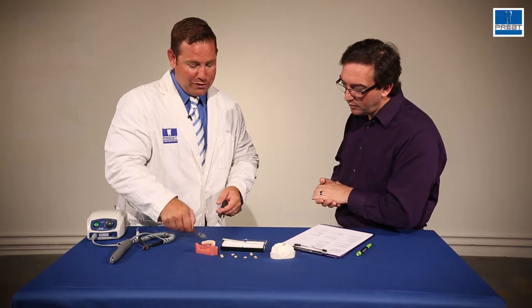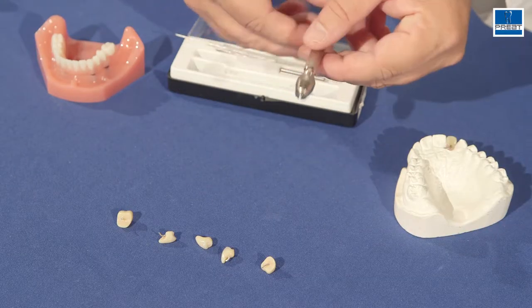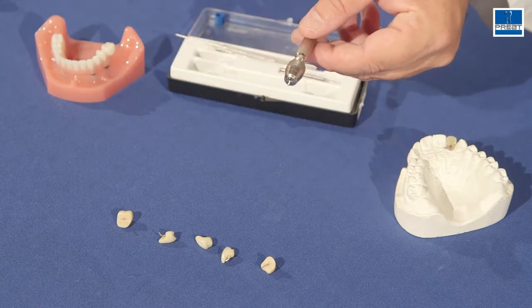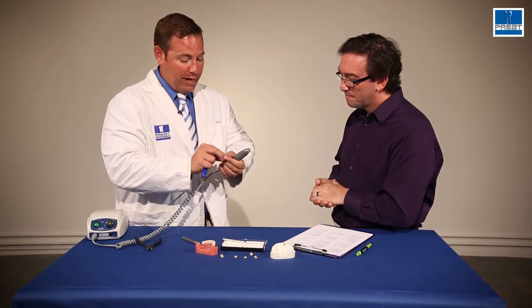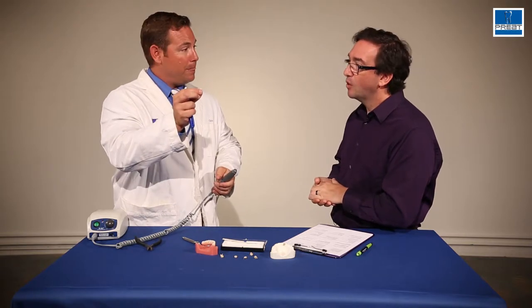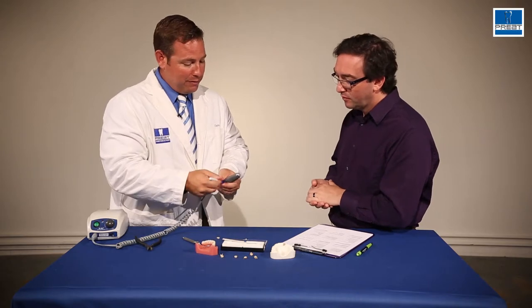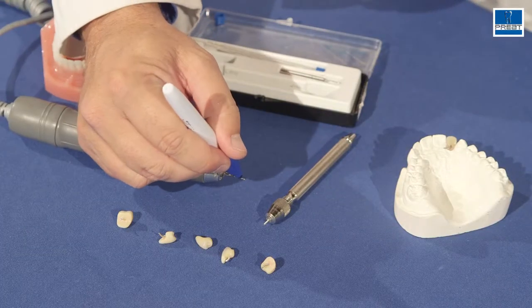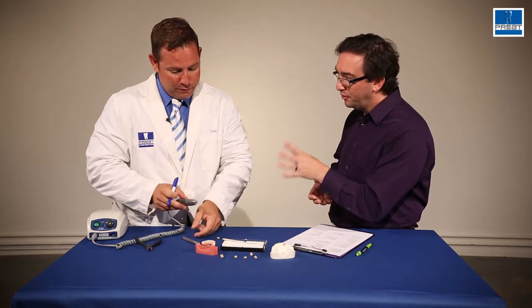The third piece of the system is the wire holder. We're going to put our threaded silver wire into the wire holder and measure it out. When I take a look at the tooth I want to repair or add on, I decide how far I want to drill in. In this case, I want to drill about one millimeter, so I'm going to take a pen and mark on the drill one millimeter. You can use any pen for that.